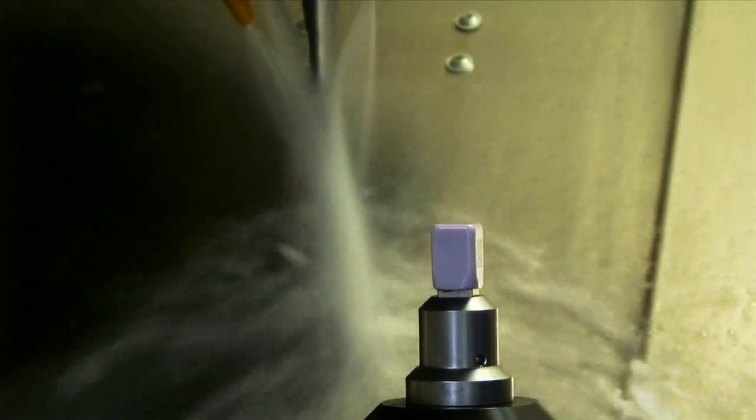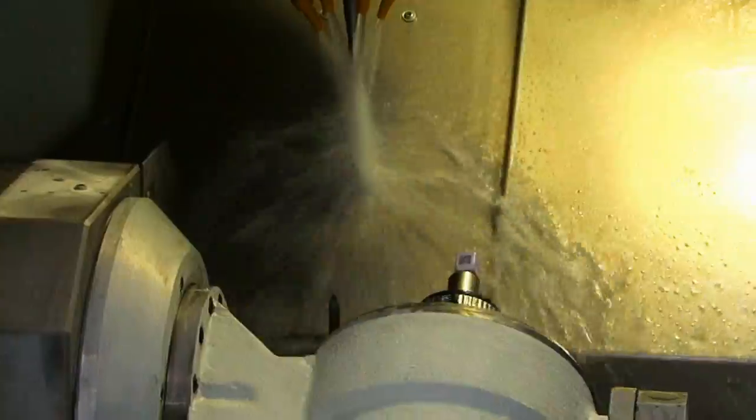With precision accuracy, the rotor system proceeds to efficiently mill the ceramic material.